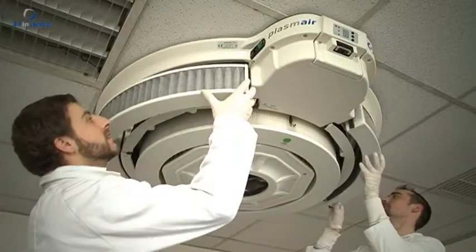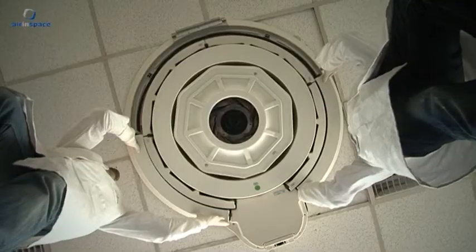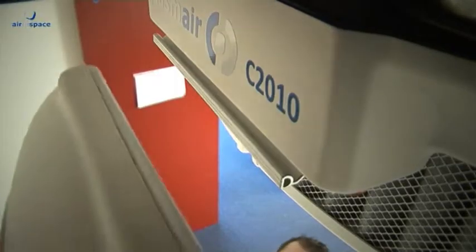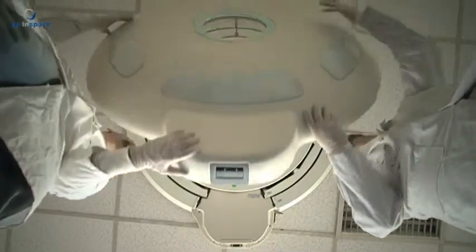Installing the fourth stage module: Use both hands to pick up each quarter of the module and clip it onto the base. A narrow channel around the cover fits easily onto the base. Close the cover and fix the safety chain.